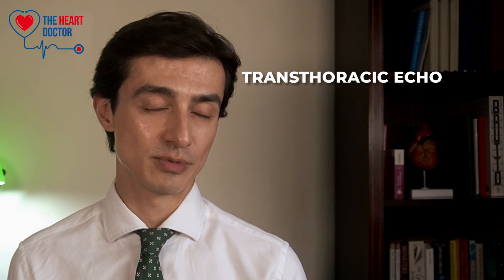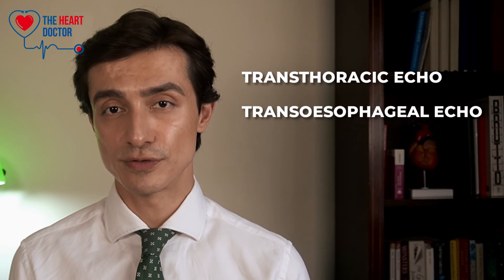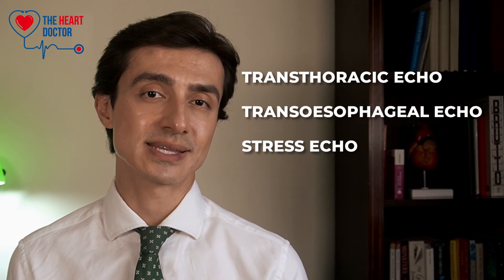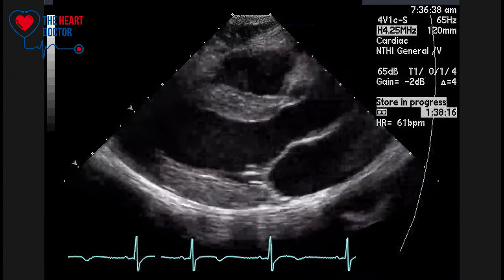So to sum up, I've told you about the three different types of echo: transthoracic echo, being the most common type; transoesophageal echo, where a probe is passed into your food pipe for detailed images of your heart; and a stress echo, to assess how your heart functions when it's working harder. Each type of echo has specific indications and is generally safe. However, there are potential side effects to consider with transoesophageal and stress echo. Echo is a hugely important tool in cardiology, helping us to make diagnoses and manage many different types of heart conditions.